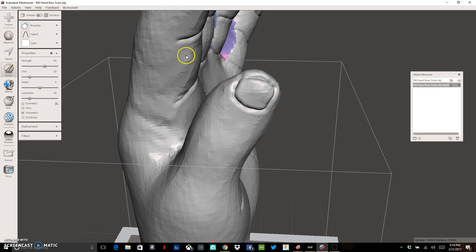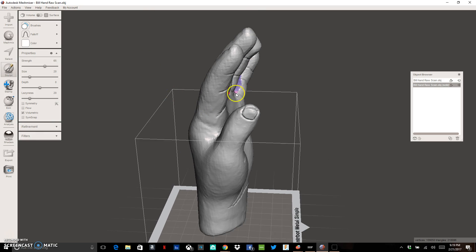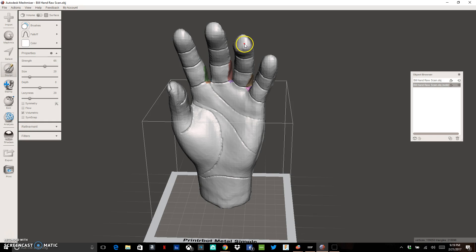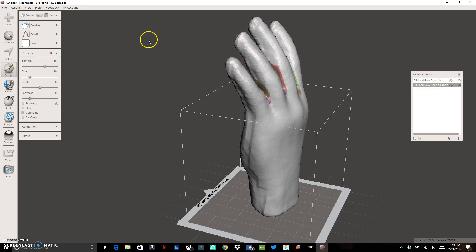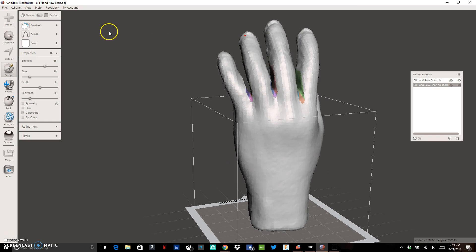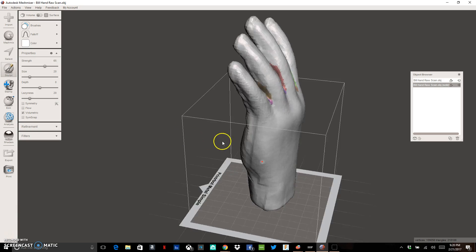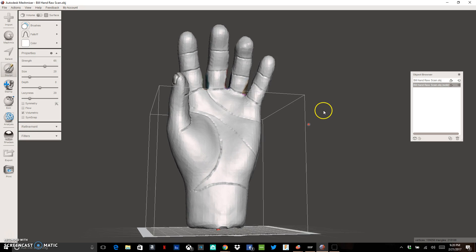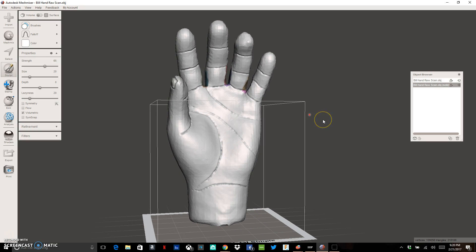Do general smoothing of the hand until you're happy with the appearance. At the very end you should have a relatively realistic looking design. We could use this as a terminal device or as a hollowed-out cosmetic prosthetic, and we'll show you how to do those in a separate video.